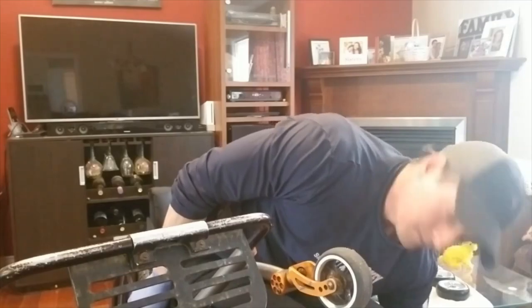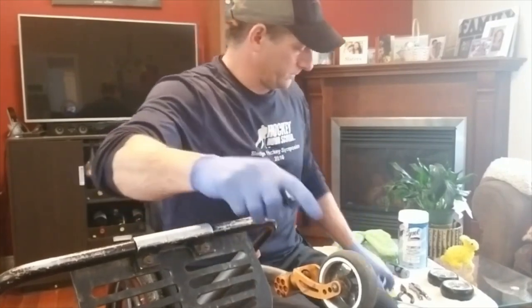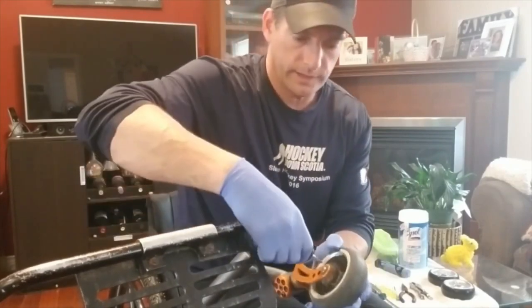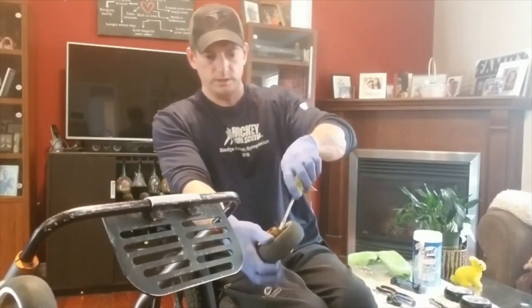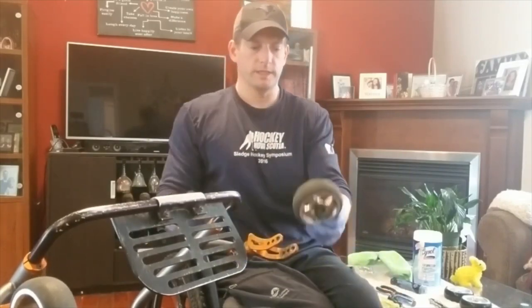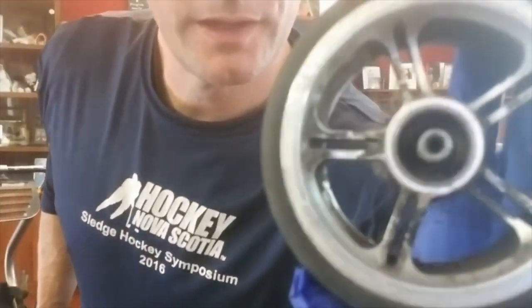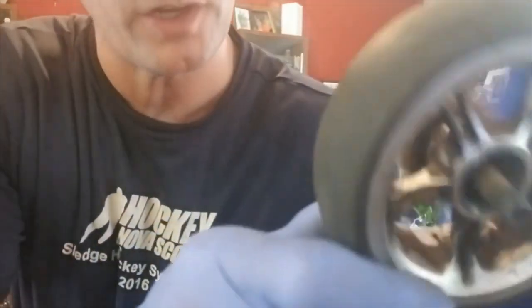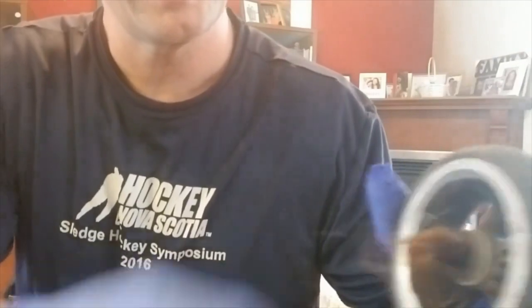I'm always dropping tools and hardware, and I almost just dumped myself out of my chair. So that's one down. This one here — let's see if I can't get it out. It is so gunky. Yeah, it's stuck. There! Okay, I finally got that out. I shredded my glove — got to get a new glove. I finally got that sucker off. Look — no bearings in there at all. The little ball bearings are gone. Kaput. And look at the hair that's been accumulated. It's just nasty.